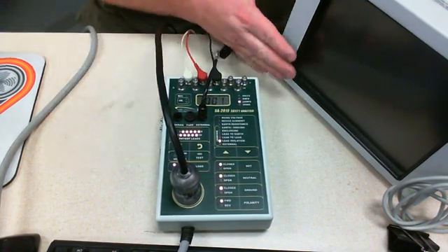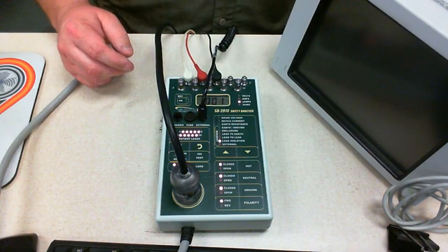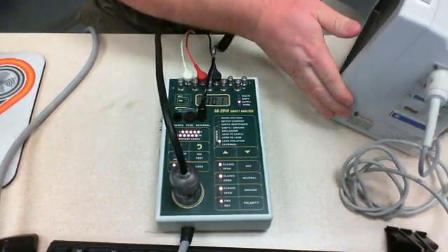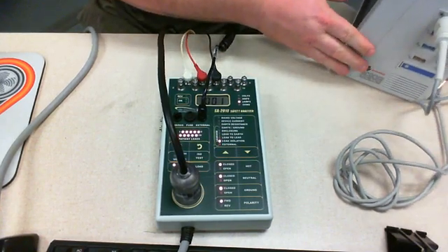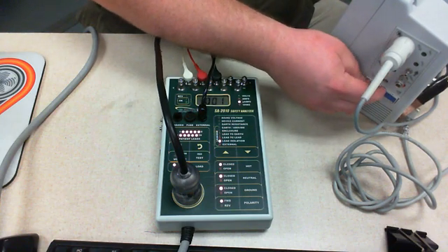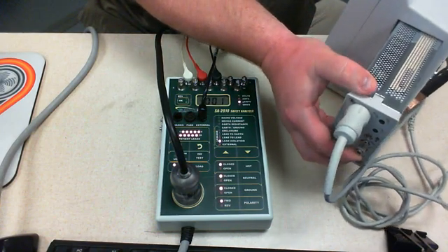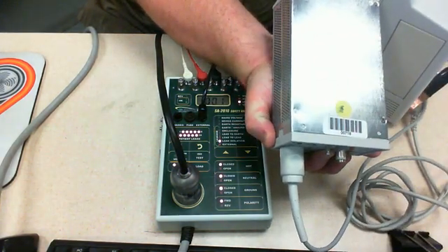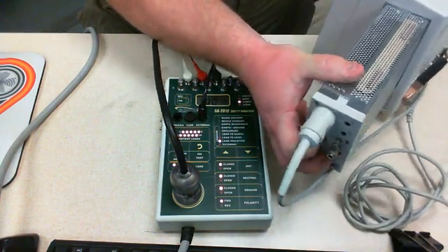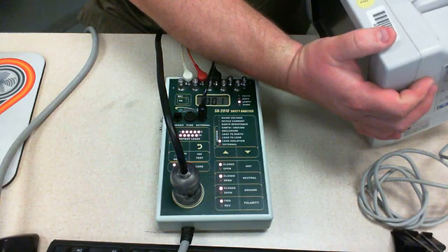The reason I'm keeping the device off is because the second I turn on the medical monitor, it's going to start screaming because it doesn't have a signal. When you do electrical safety, you're going to need to hook up the ECG connection. Please don't forget — this is a system component. It should have a barcode number on it. Make a note of the system component that you're testing along with the monitor, whose barcode is up on top.